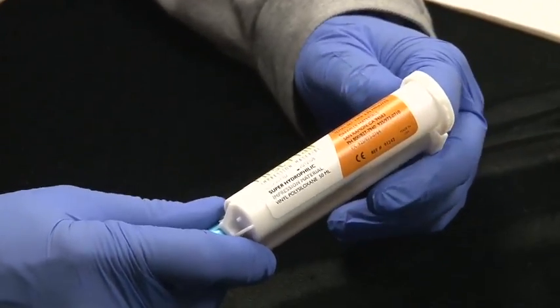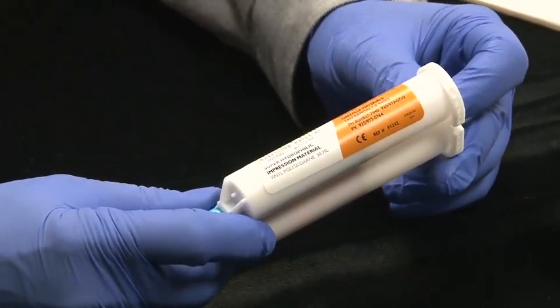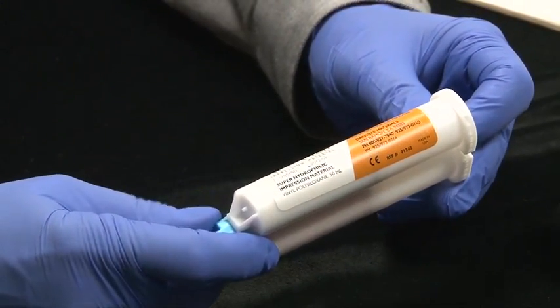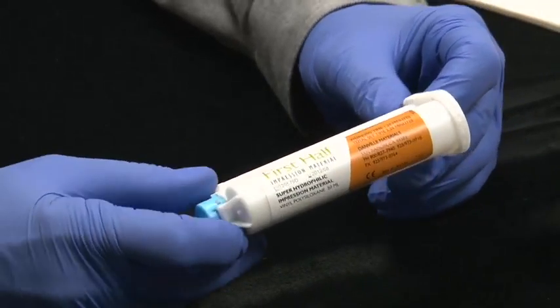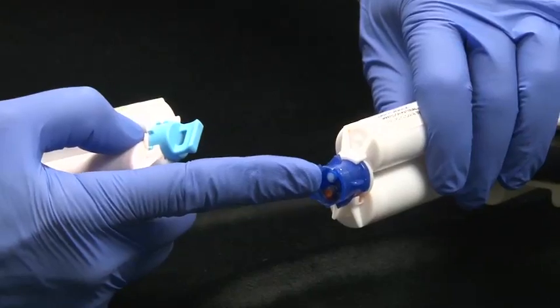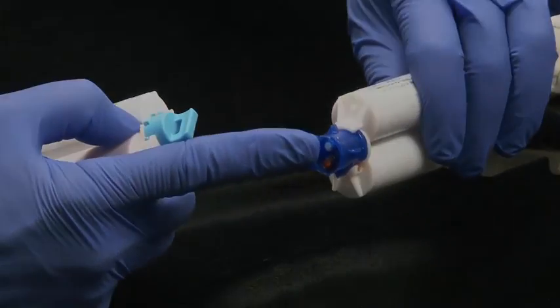Of course, you might be placing this into the Mojo syringes that we talked about on another video. So please feel free to look up Mojo syringes for the Mojo 2 for saving material and costs. Thank you very much. I hope you've enjoyed this video on learning how to use your Lock and Reload and save money and time and stress.